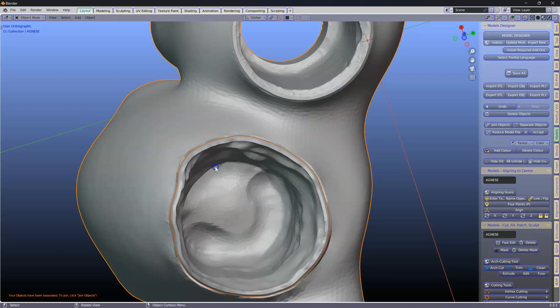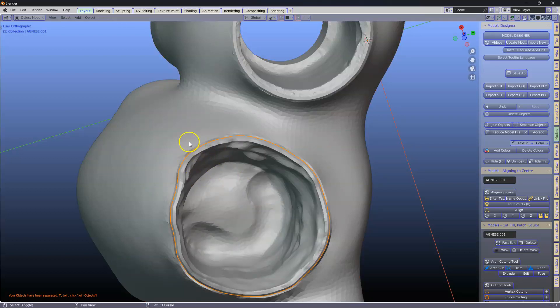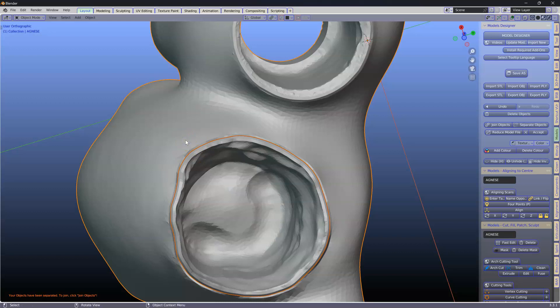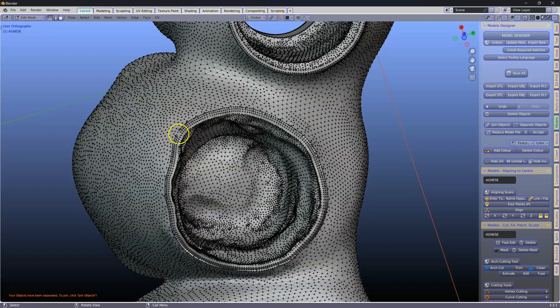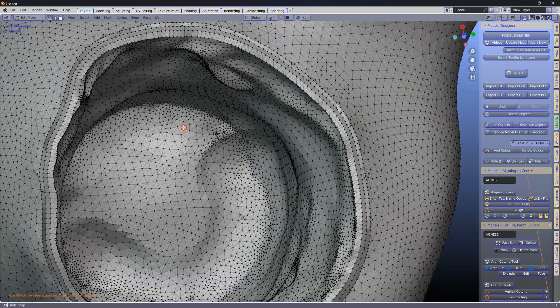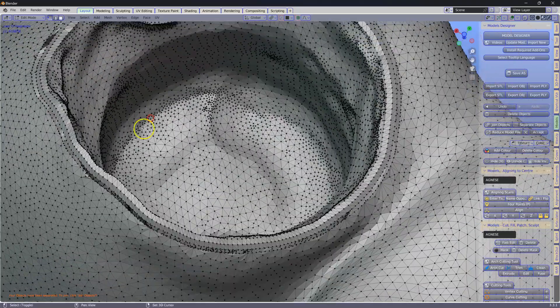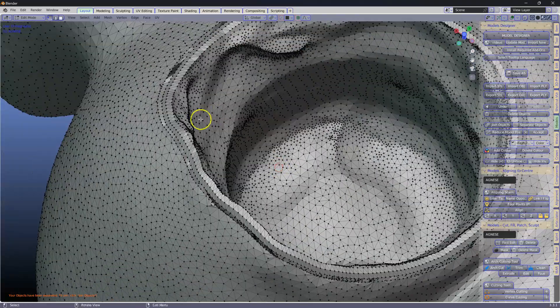Alt H to unhide it. Take this one and this one. Ctrl J on the keyboard to join. Tab. Now we've got them joined up again.